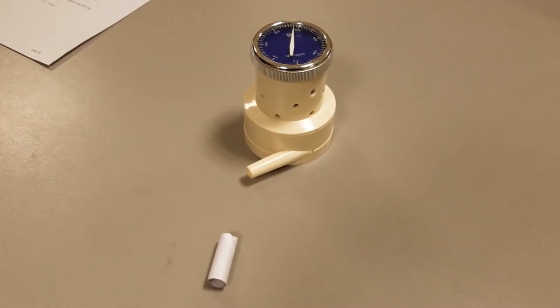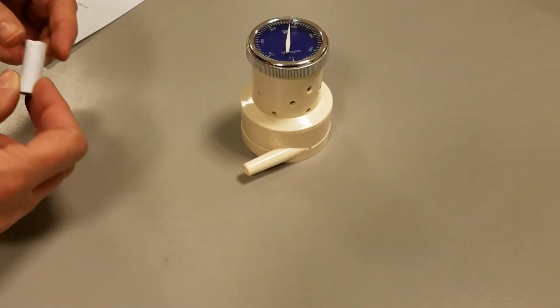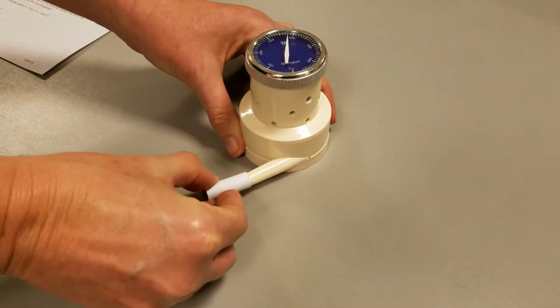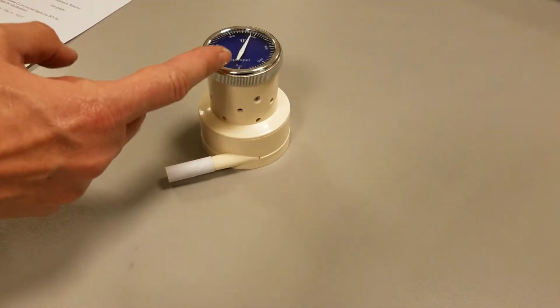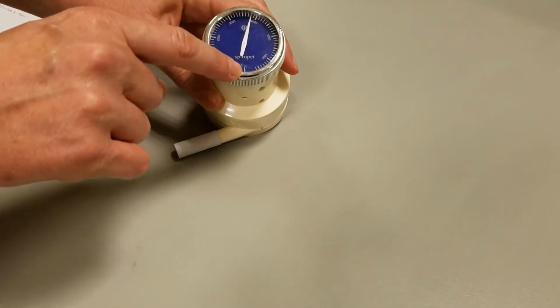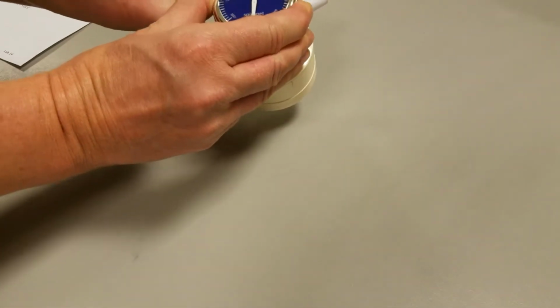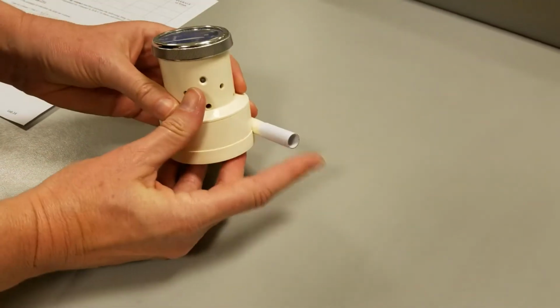So before we start, there are a few things you need to do. Of course, you don't want to stick your mouth on this because lots of people are using this equipment. So we have these disposable paper tubes that you would put on, a fresh one that only you have touched. And the other thing is that you need to calibrate this. Right now it's showing some previous person's reading, and the 0 is here. The way you set it is that you twist so the arrow is lining up with the 0, like that. And now you're ready to use this and blow in here.